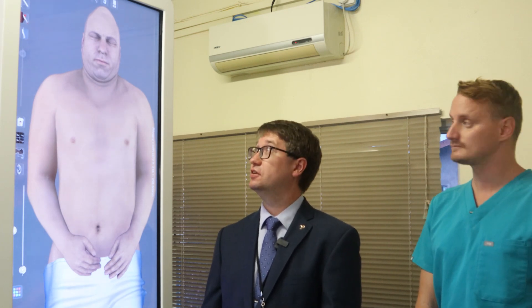Today we will demonstrate a few features of the Anatomage Table, a device that we are using to conduct anatomy classes along with cadavers. The Anatomage Table is a device that allows you to do virtual three-dimensional dissection.